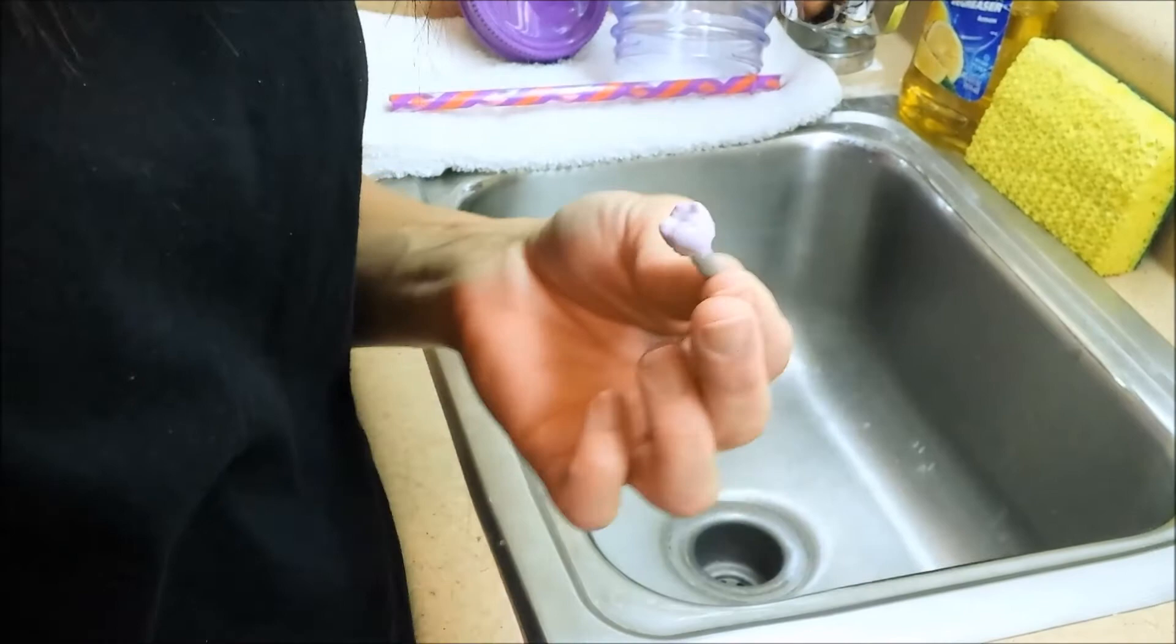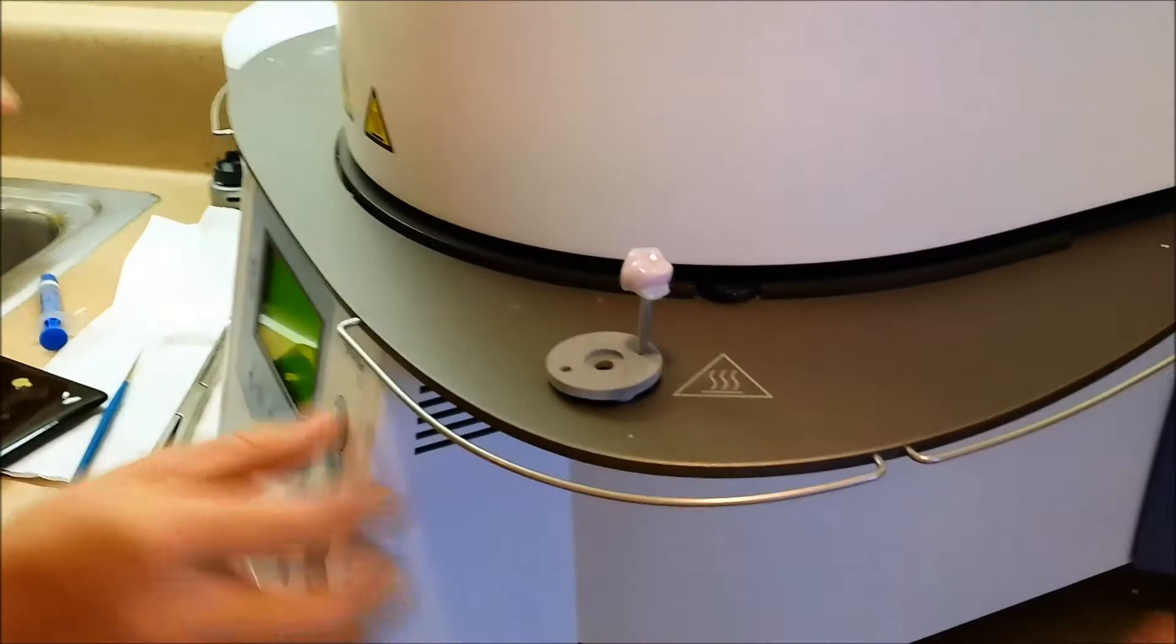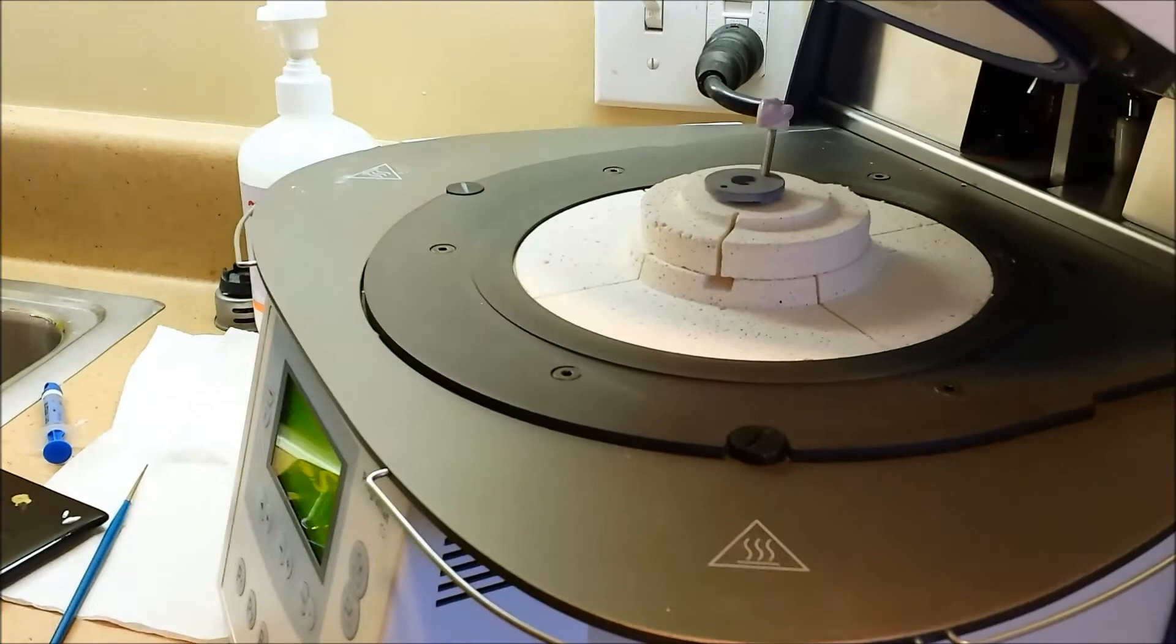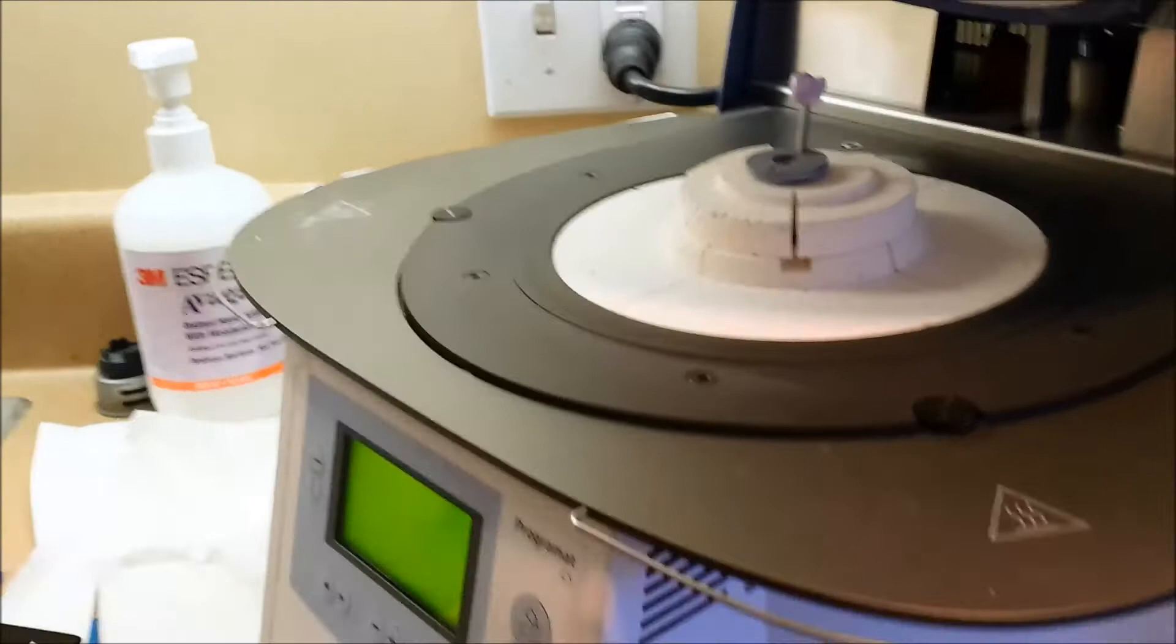So it goes here onto our crystallization tray. This is going to open. It's at 550 degrees. So P3 start. And then it's got 14 minutes. This will slowly close. And it'll go down and then it goes back up to like 600 degrees.